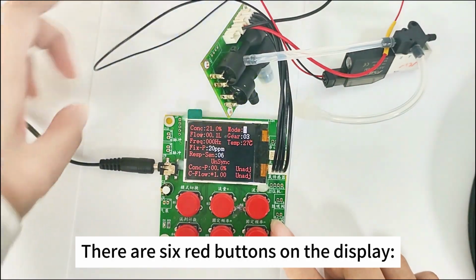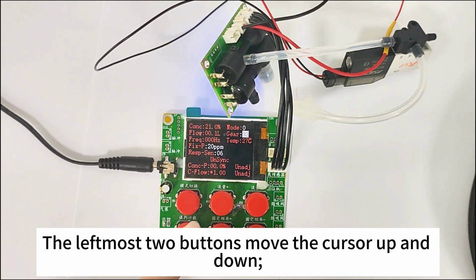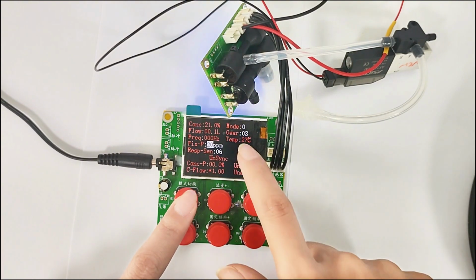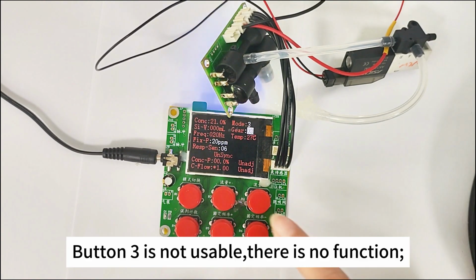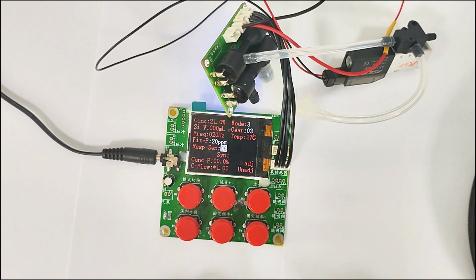There are 6 red buttons on the display. The leftmost buttons move the cursor up and down. The middle two buttons increase or decrease the value. Button 3 is not usable. There is no function. Button 6 is to enter the adjustment mode and retain the adjusted data.